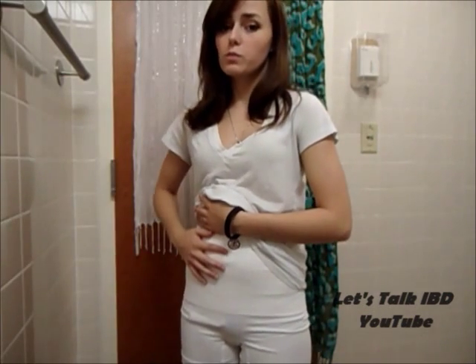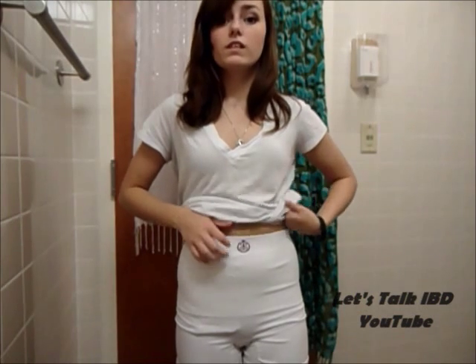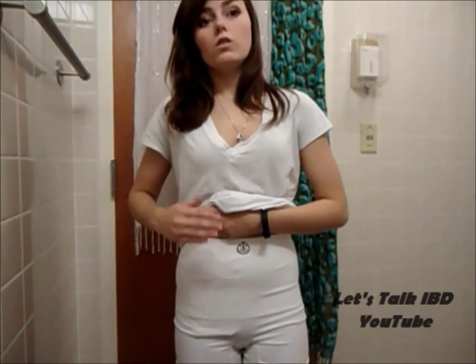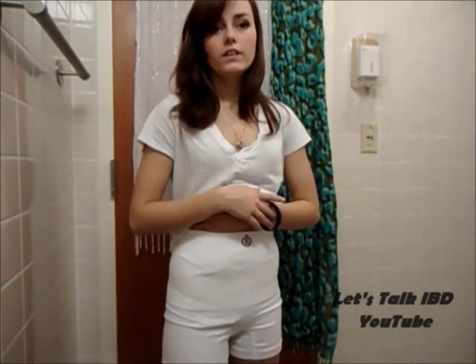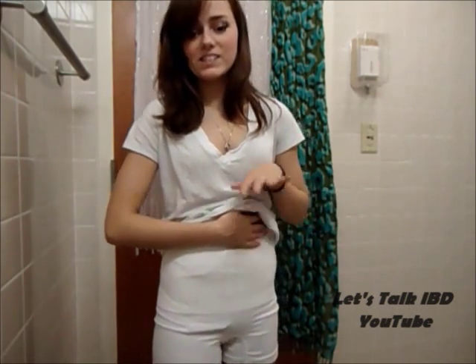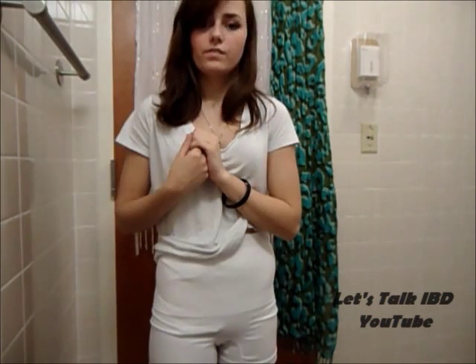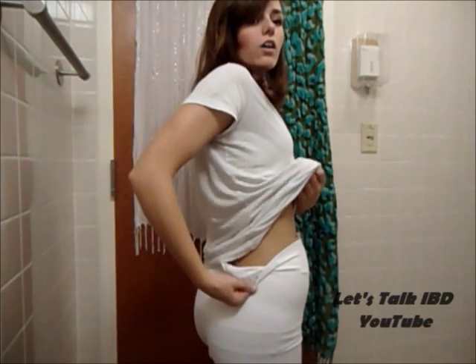These have extra support, especially if you're going to wear a dress — this would be great to make sure that it's going to be flat, and this really makes sure it's going to stay on. I would say wear this for more of a special occasion, when you want to be absolutely sure that no one can see your ostomy. Even though these are doubled up on the layers, this is still very nice and cool and dry — never felt hot wearing it. It reduces the dragging feeling, has hernia symptom relief, and keeps the bag smooth.